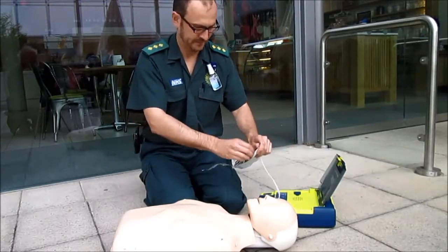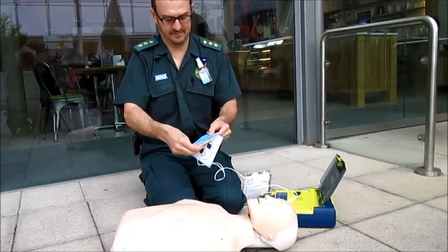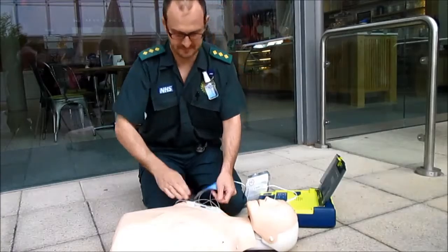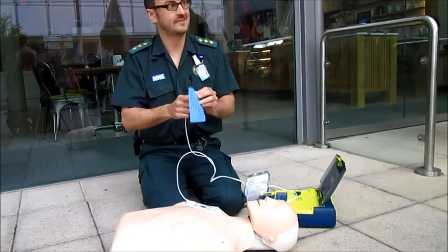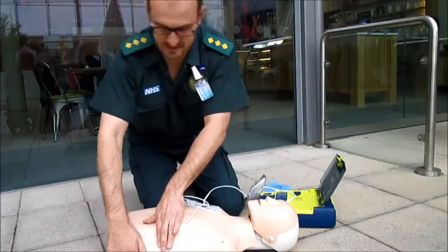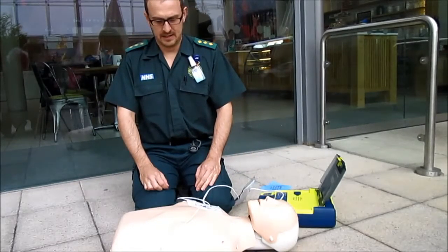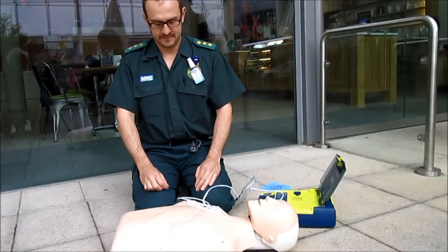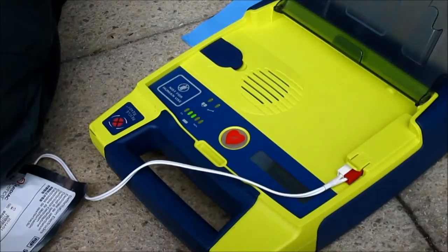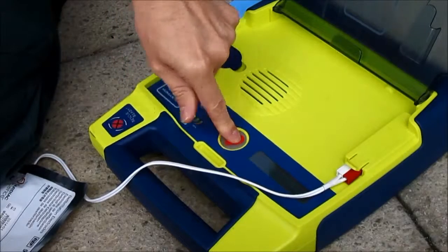The machine instructs: tear open package and remove pads. Peel one pad from plastic liner. Place one pad on bare upper chest. Peel second pad and place on bare lower chest as shown. Do not touch the patient. Analyzing rhythm. Shock advised. Charging. Stand clear. Push flashing button to deliver shock. Shocking now. Shock delivered.